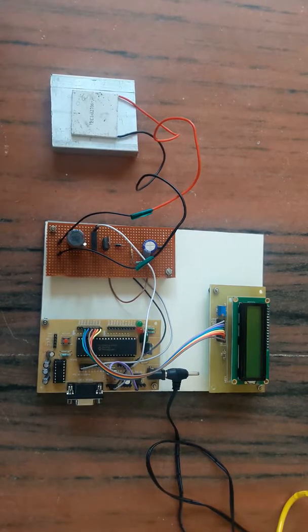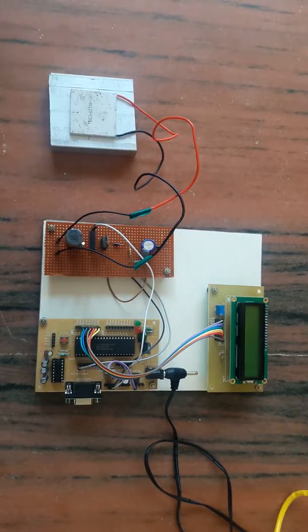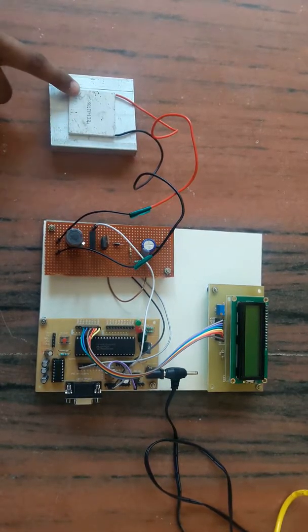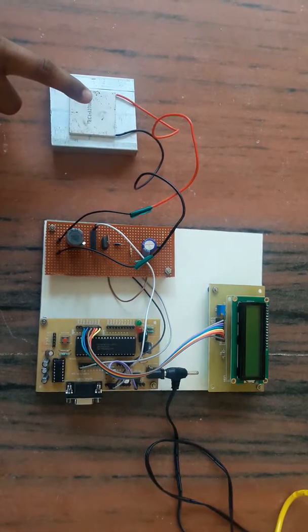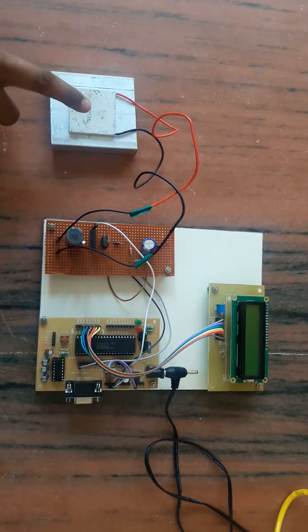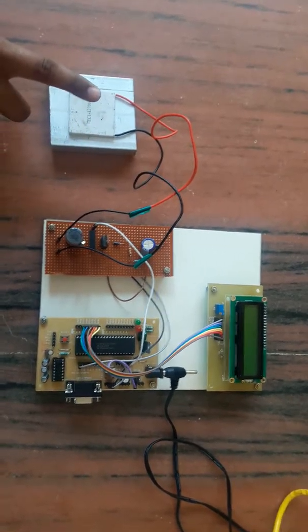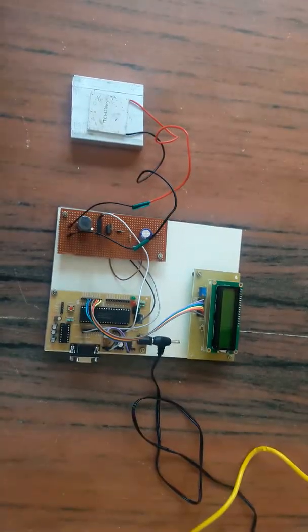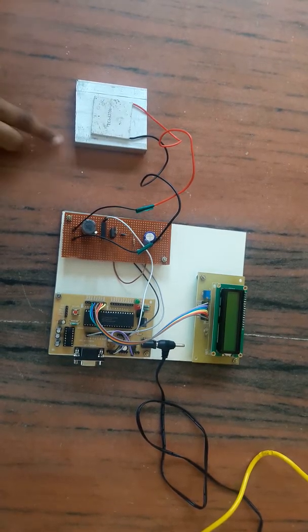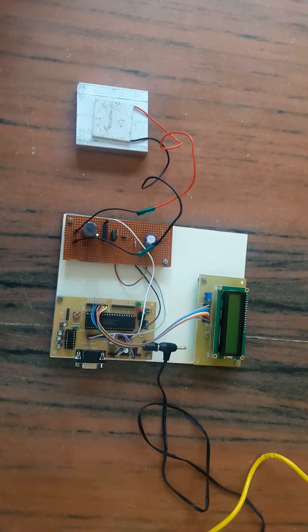This is done by harvesting the body temperature of the person and converting it into electrical energy, which supplies power to the pacemaker. The thermoelectric device called the Peltier is used. This Peltier absorbs both hot and cold temperature of the body.